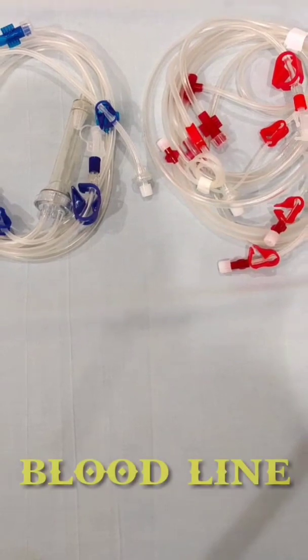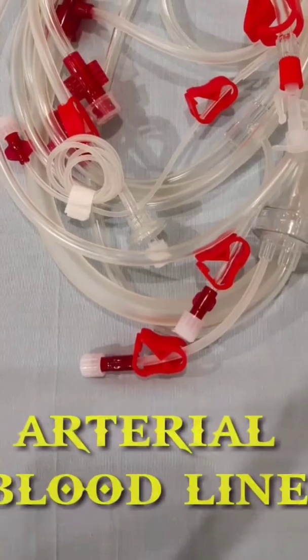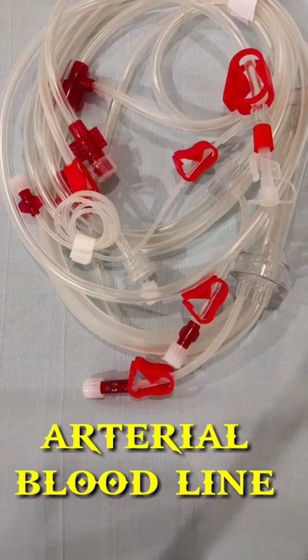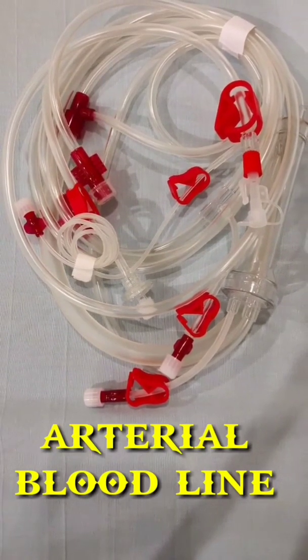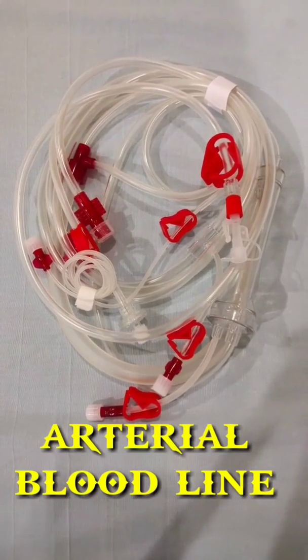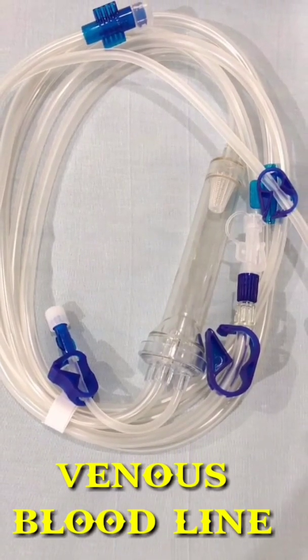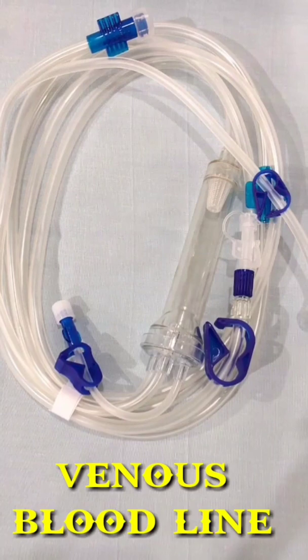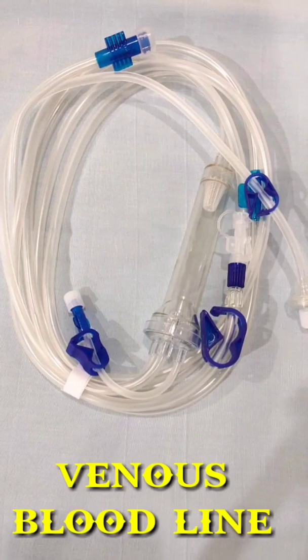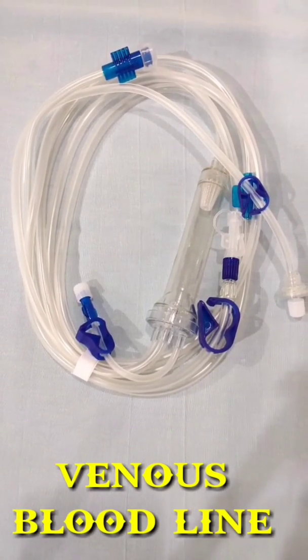Number 4, the blood line. The blood line consists of two parts. One, the arterial blood line, is a tubing or plastic tube that connects blood from the patient's vascular access tubing to the dialyzer, called the inlet, marked in red. Two, the venous blood line is a tubing or plastic line that connects the blood from the dialyzer to the vascular access tubing to the patient's body, called the outlet, marked in blue.